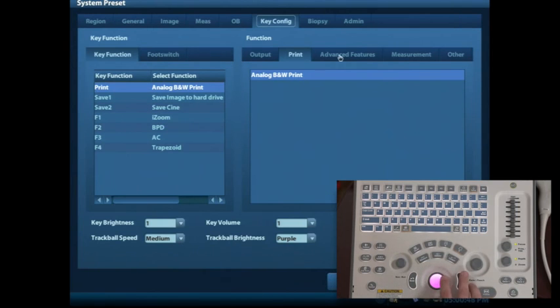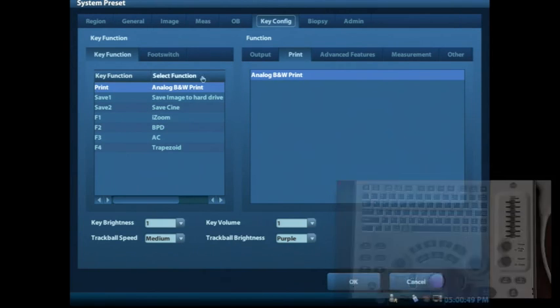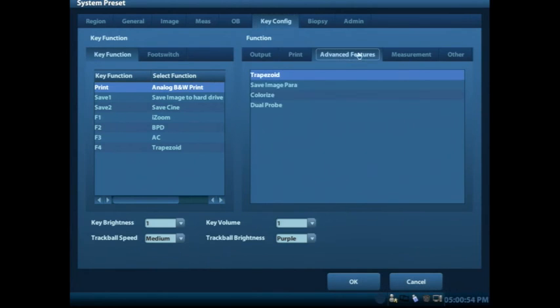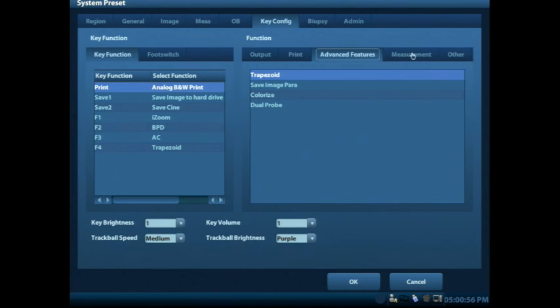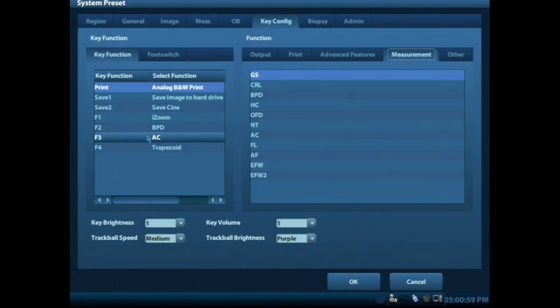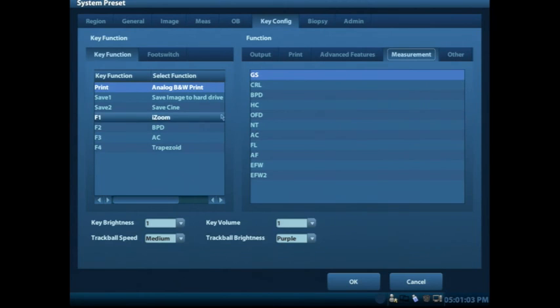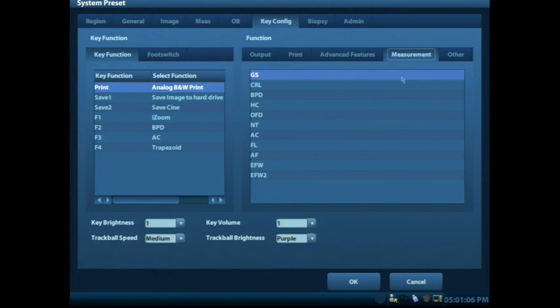As we look at those different features here, we see what they're set up for currently, and then we can look over here on the right side and see what the features are that we can add to them. You'll notice that these F1, 2, 3, and 4 keys at the top are a nice way to configure different things that you want to touch as kind of a quick setup function, a quick go-to, if you will.